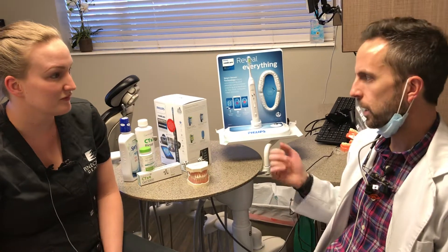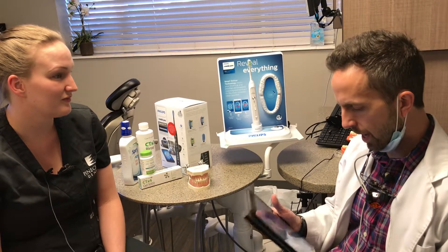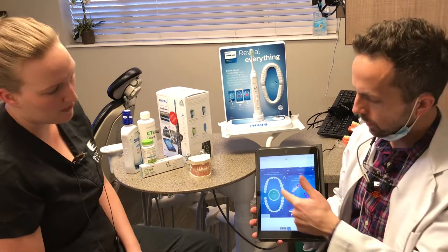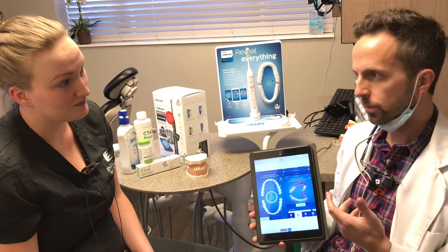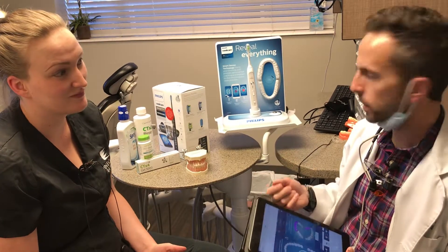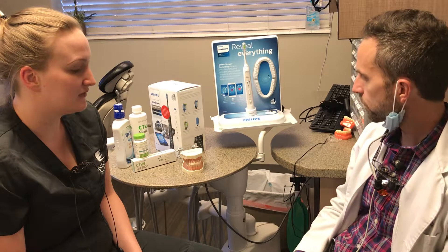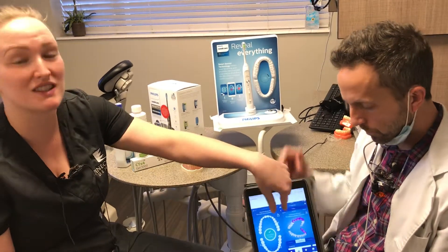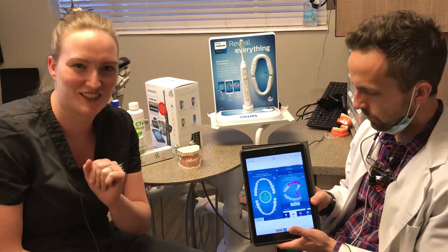When I had my first Sonicare, after a few years the battery died. For the month or two before I got a new one, my teeth felt a lot dirtier — I didn't notice an instant change when I first got the brush, but when I didn't have it, they really didn't feel as clean. There's also a kid's app, and when I was teaching my kids to use an electric brush, they had a lot of fun with the game built in, which kept them brushing for the full two minutes. A lot of us think we've done two minutes when we've really only done 30 seconds. The app also shows you any areas you missed when you're done so you can go back and get a complete clean, and it checks whether you've flossed — you have to answer yes or no, which is a good reminder.